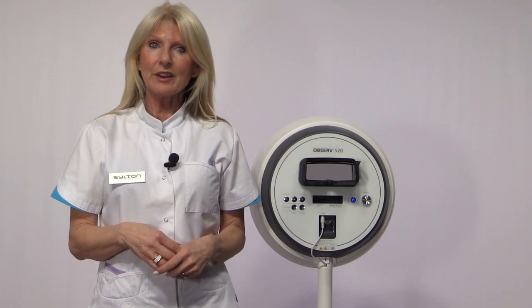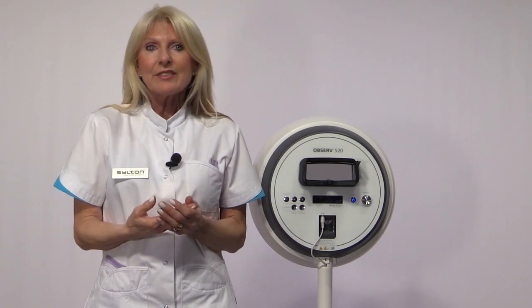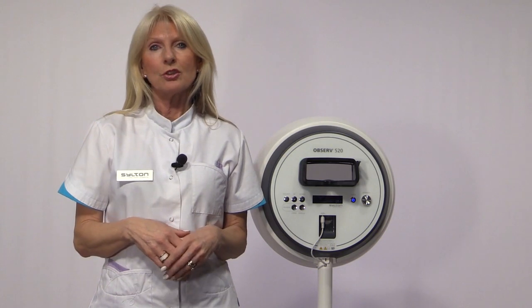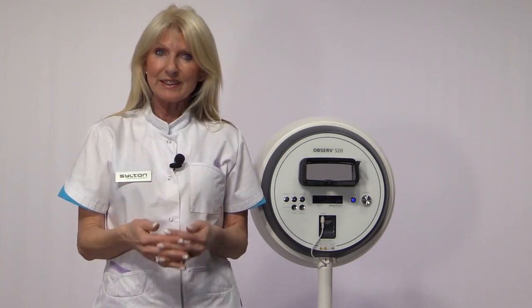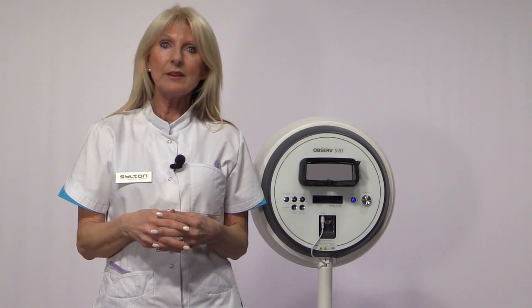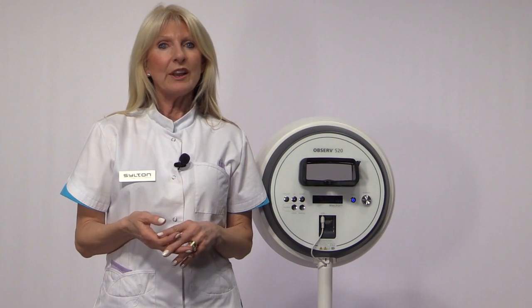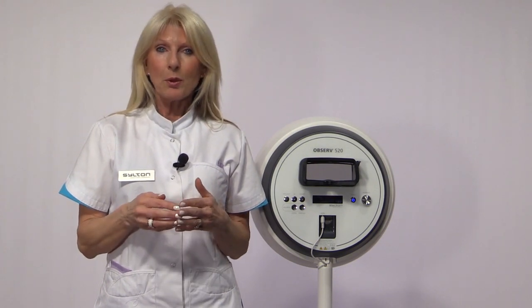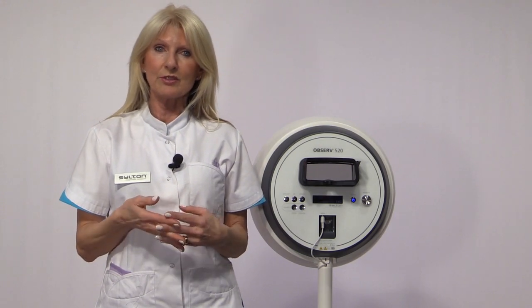You will see later that this mode gives you a totally new perspective of looking at the skin. It is like the skin is being illuminated from the back with a light torch, showing off the skin's concerns, which are still hidden in the skin and may surface in time when not addressed. You will find out that this mode is probably one of the most powerful methods to analyse the skin conditions.